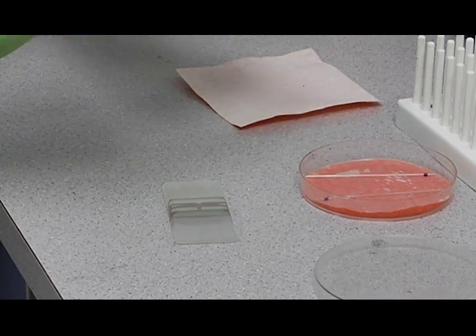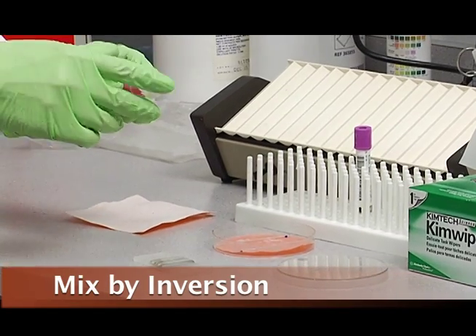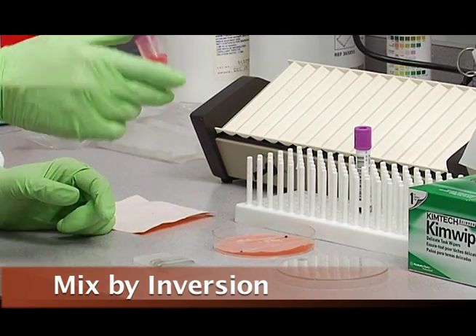Take this, and you want to mix this again very well. Don't do this. It needs to be complete mixing by inversion.